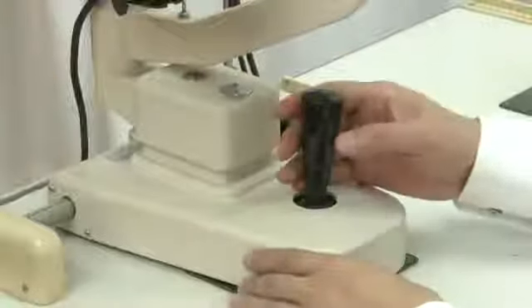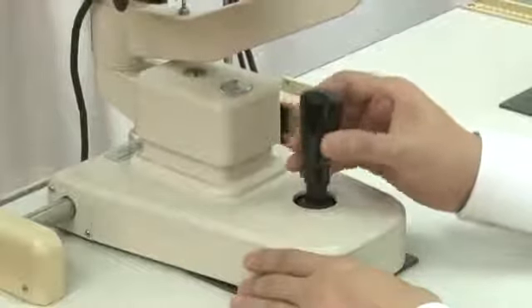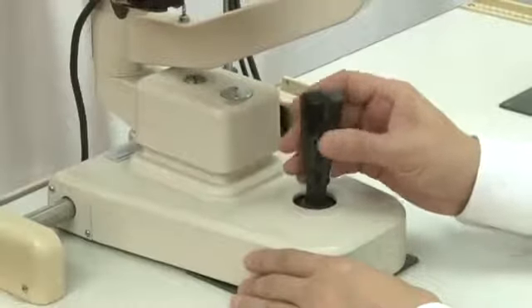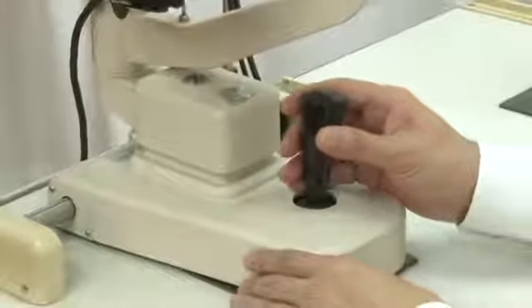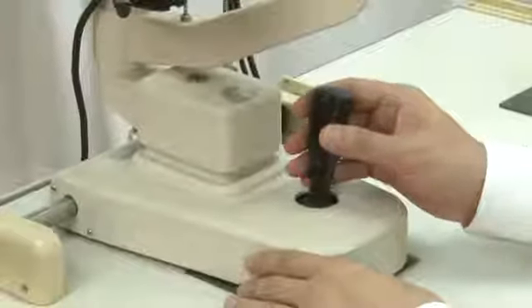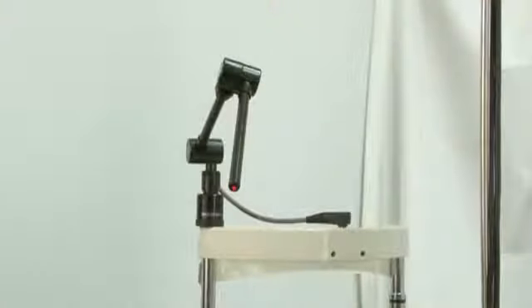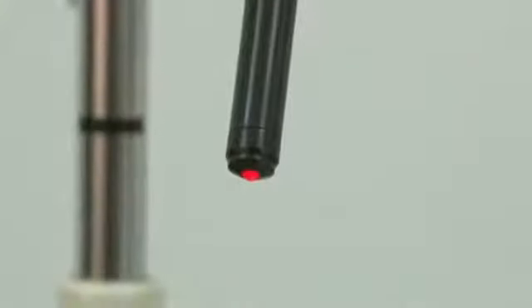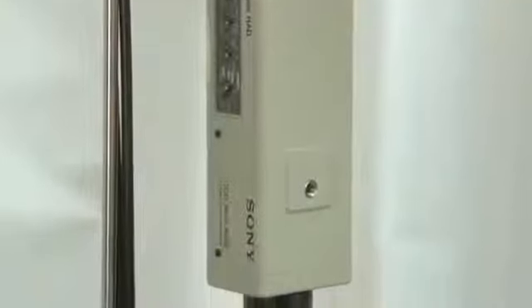The two systems are also joined on a movable platform with a joystick that controls vertical, forward, backward and right-left adjustment. Attached to the top of the headrest is a fixation rod to guide the eye gaze position. Nowadays, modern slit lamps also allow for ocular photography and video photography.